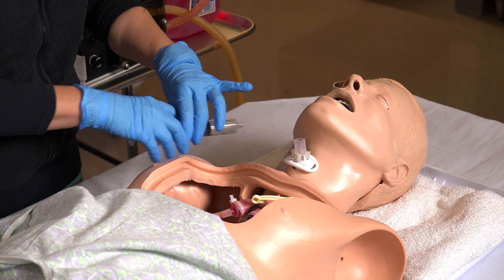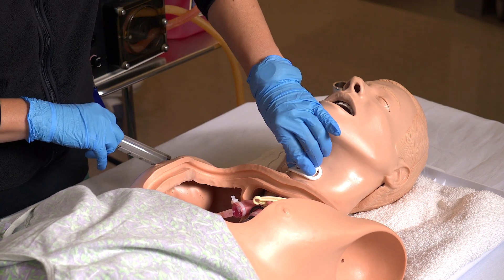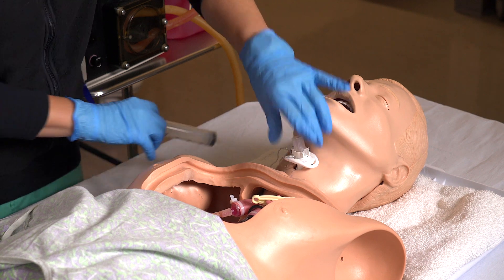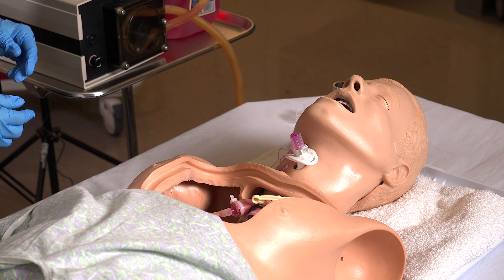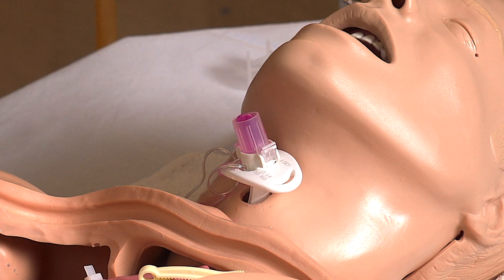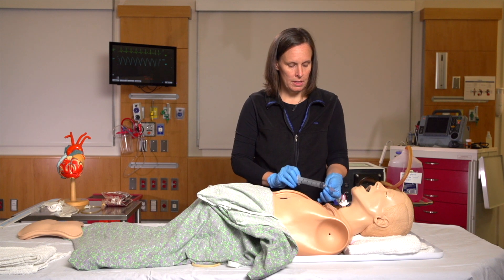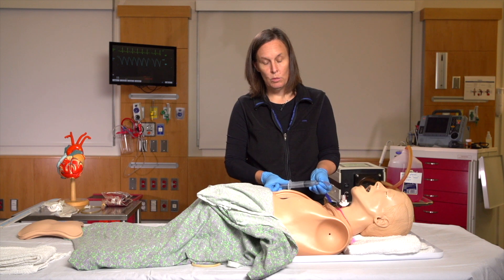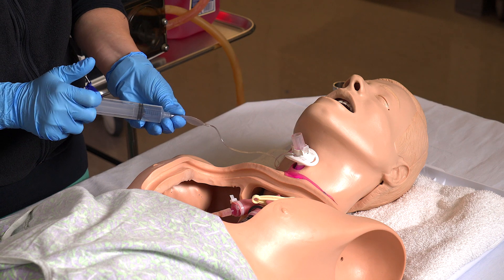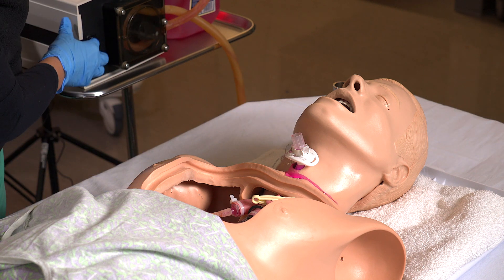Let's take a look at what happens when you have your tracheostomy in the mannequin and turn the pump on. This is how you'll simulate bleeding from the tracheostomy during the case. If your balloon is down, you'll notice blood coming from the stoma itself, which is fine. There is a difference in effect whether the balloon is up or whether the balloon is down, so that's good to take note of for the case itself.